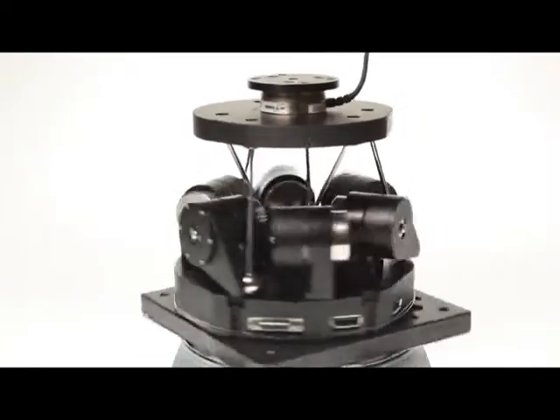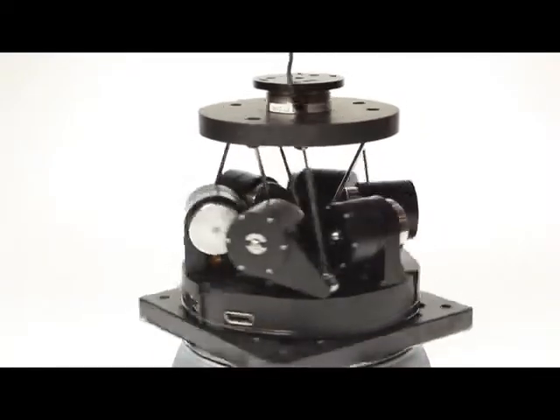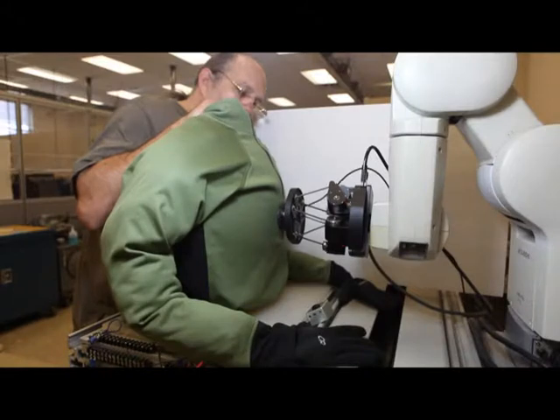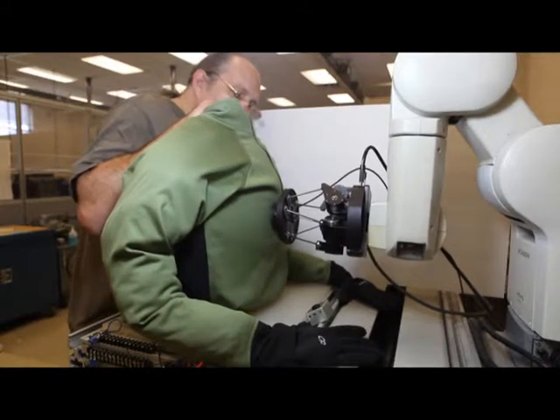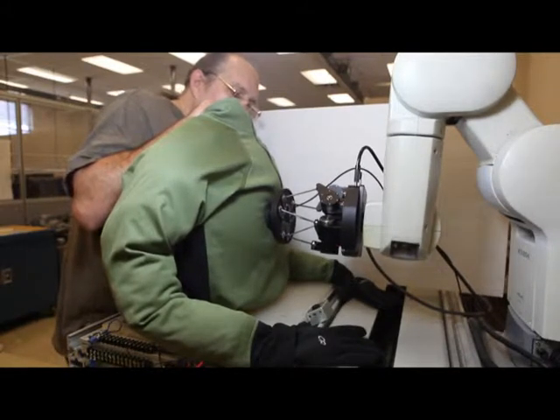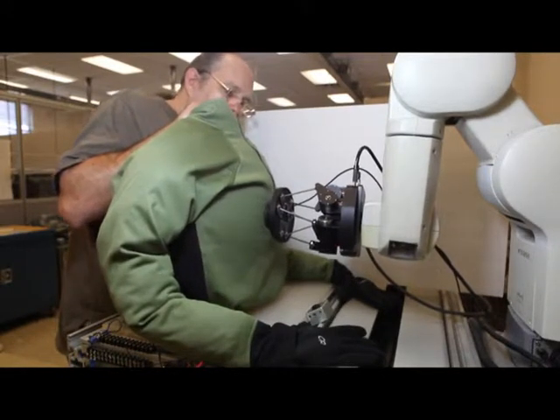DSM, with funding from the U.S. Army Telemedicine and Advanced Technology Research Center, has developed a new compact hexapod with force feedback.